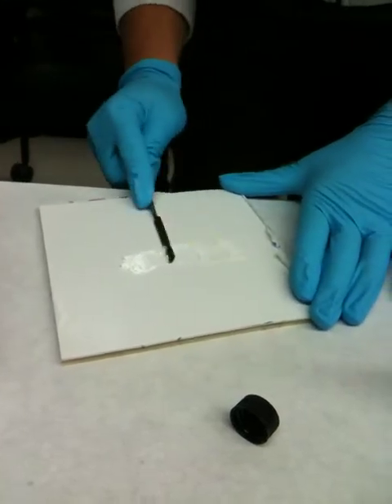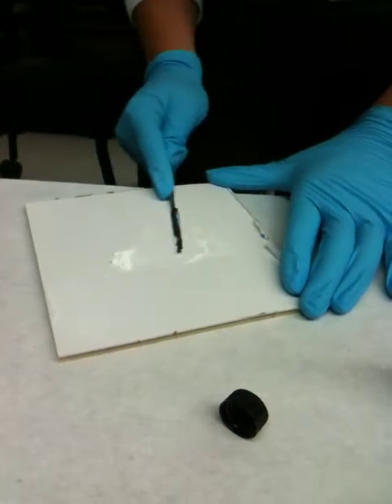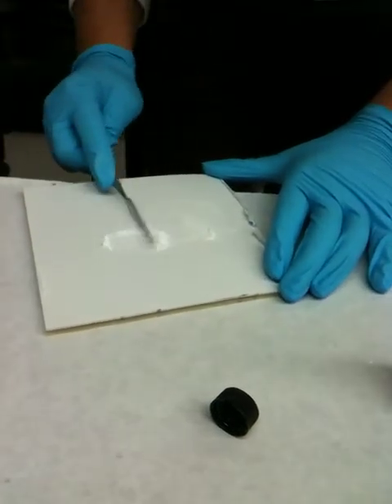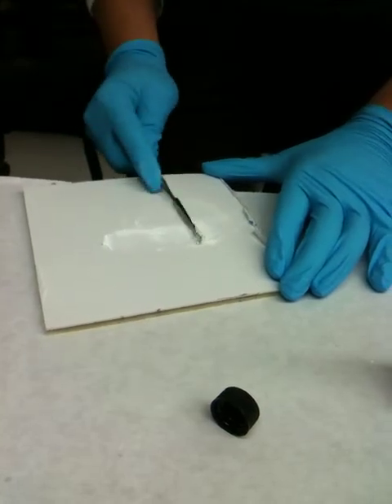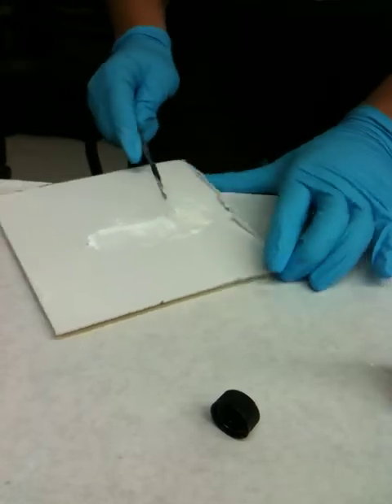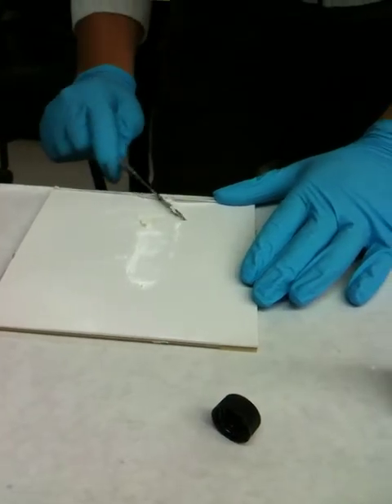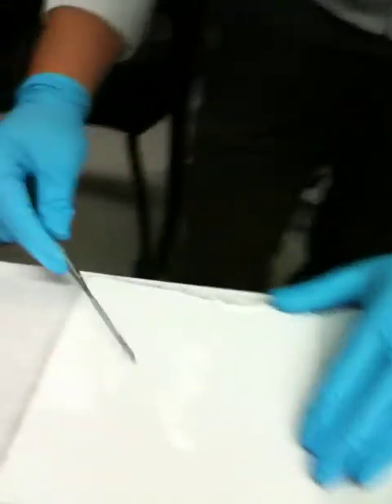Use a smashing motion. You want to make it a frosting type, so no shine on it — there's no shine to the powder, it's just liquid.